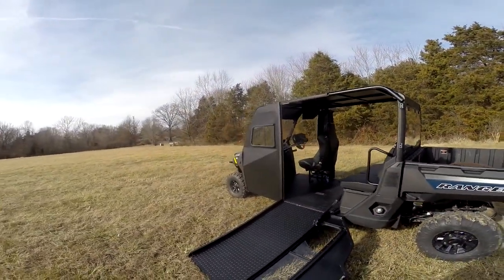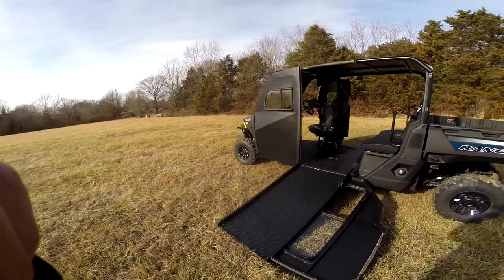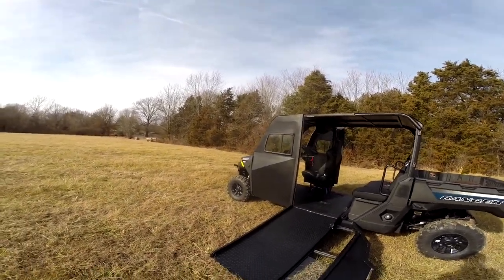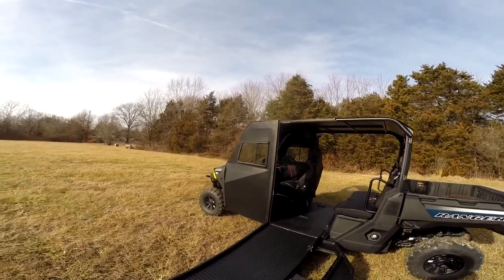This is one of our 2022 mobility quads. It is wheelchair accessible, but more importantly it is joystick driven.